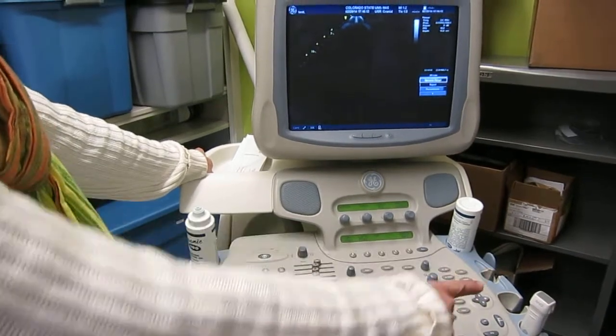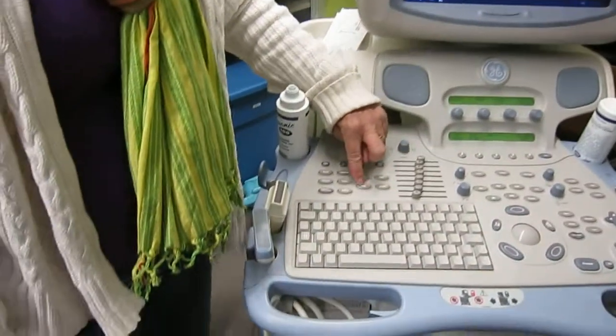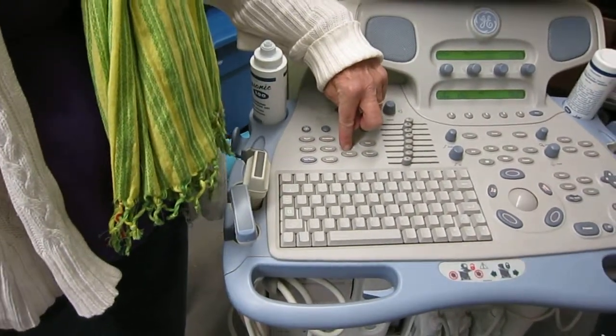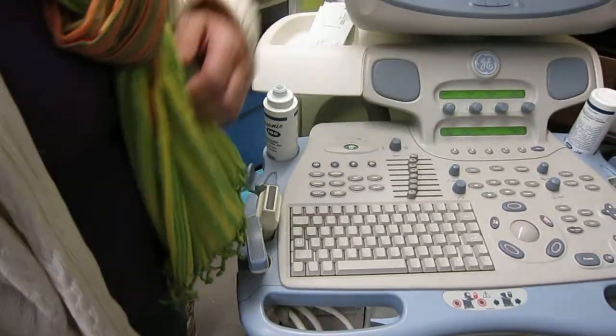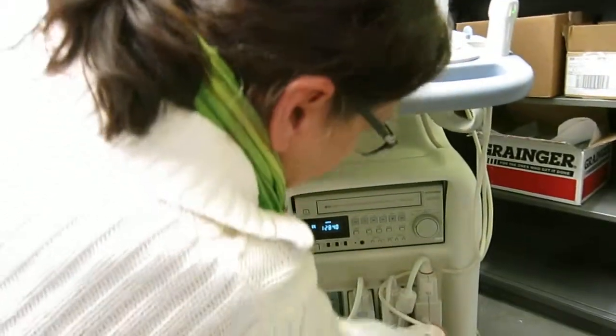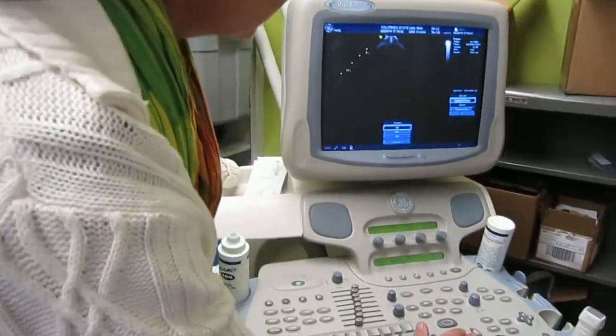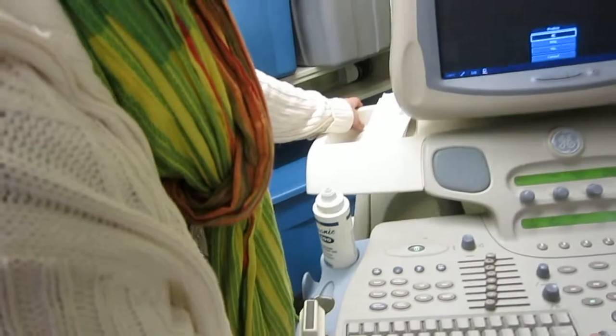It defaulted to that transducer right there. But to change transducers, you come over here to this probe button. Okay. So we're going to push that. Oh, the others aren't plugged in. I think Prasad turned them all off because we didn't know how to default it. Oh, okay. Well, we'll just turn them on, which is just turning these things. So now they're all choices. Wow, okay. And all you have to do is go up. So this 4C. 10L. Are these labeled? Yes, they are.